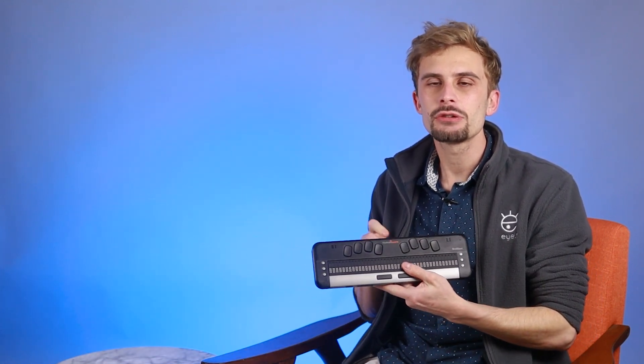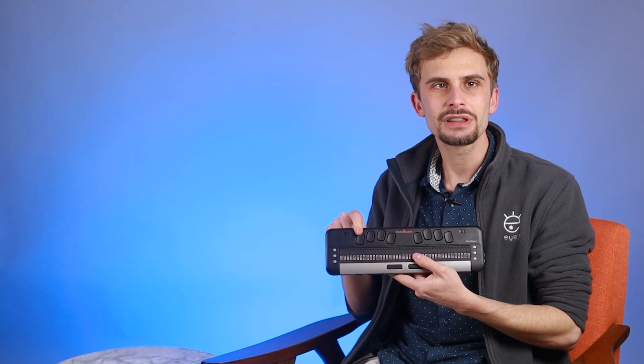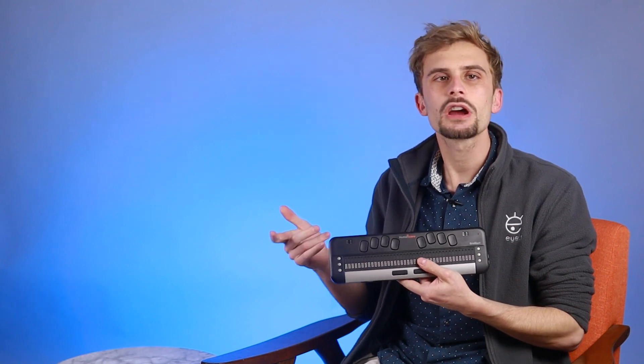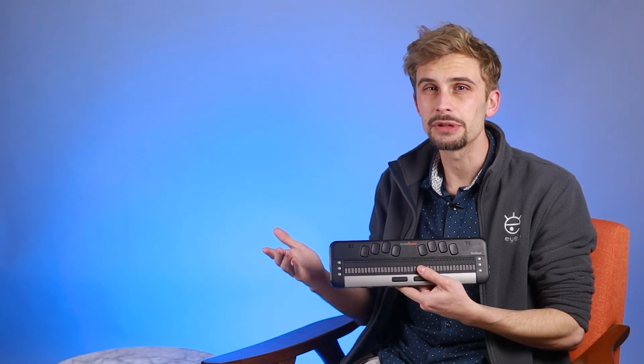First let's talk about some similarities. Both braille note takers and braille displays have a refreshable braille display. They also might both have a Perkins style keyboard like this one or a QWERTY keyboard, so they tend to look really similar.